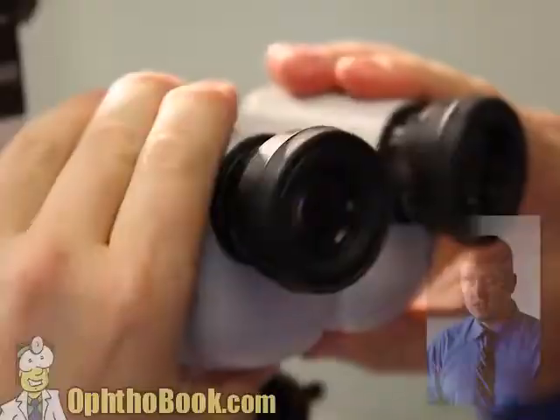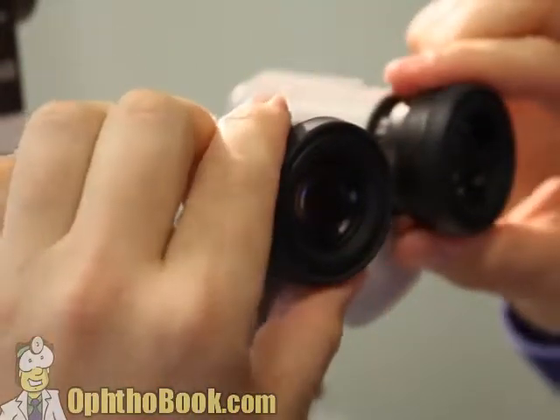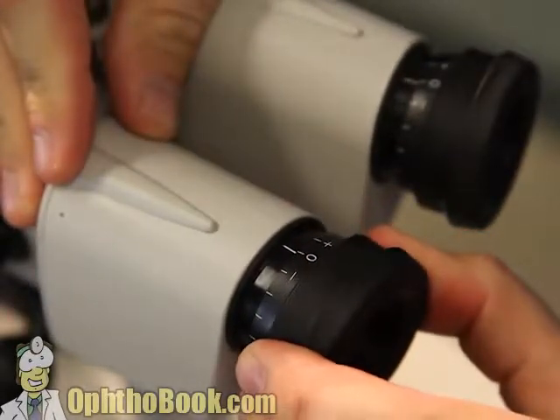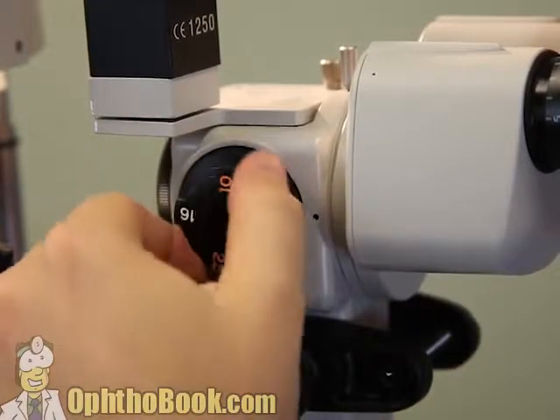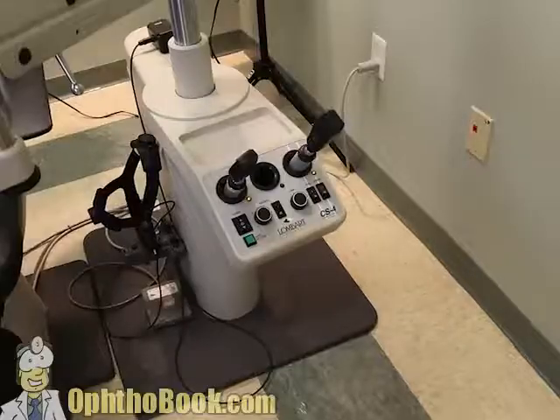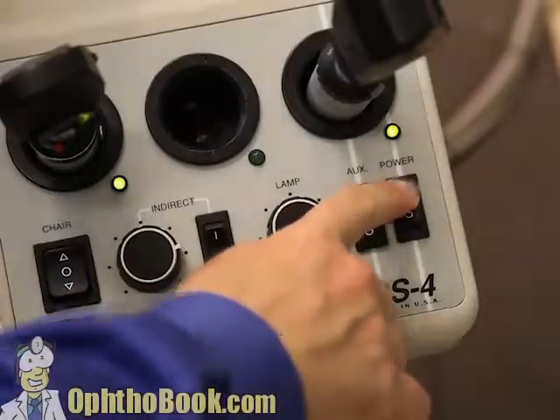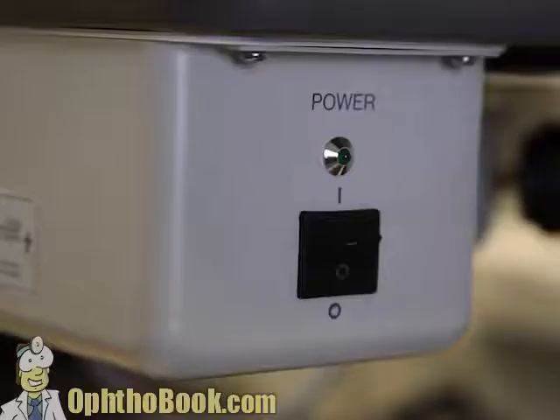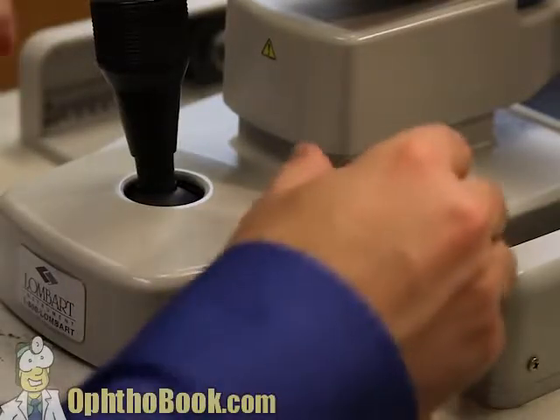Let's learn how to operate the microscope, starting from the beginning. The first step is to get your eyepieces at the correct pupillary distance — that's very easy. Then you set your dioptric power to your own eye; for most of us it's probably set to zero. Use the magnification barrel; I like to work in the lowest magnification for the entire exam. Then you need to learn how to turn your light on — there's usually an on button on the central console, and another on button underneath the table. You then need to track down the rheostat, which controls the actual intensity of light.